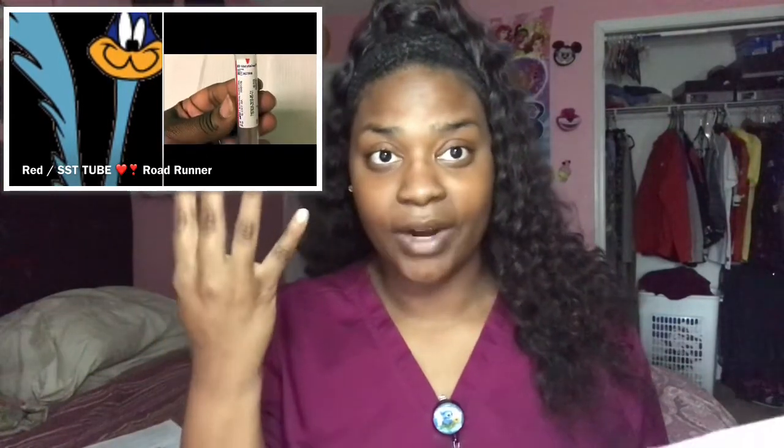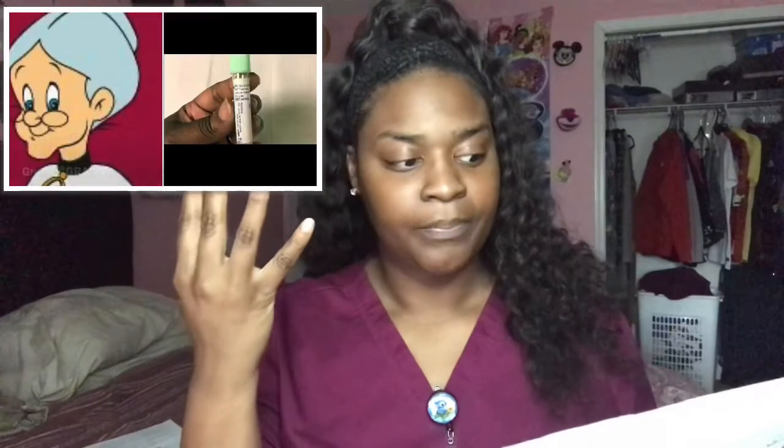Next you have green. When you think of green, think of Granny from Looney Tunes — green is for Granny. The keyword for the green tube is heparin. Next is lavender. The keyword for lavender is EDTA. Whenever you see EDTA on a test or anywhere, that's always going to be the lavender tube. CBC — complete blood count — is the lavender tube. When you think of the lavender tube, think of Looney Tunes.